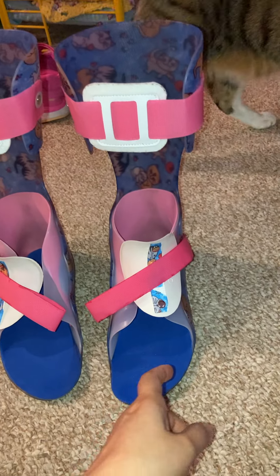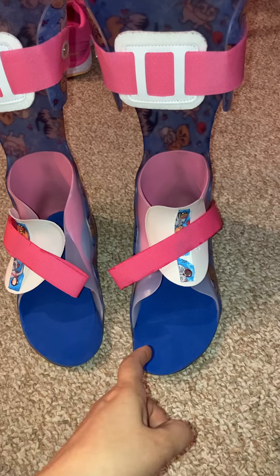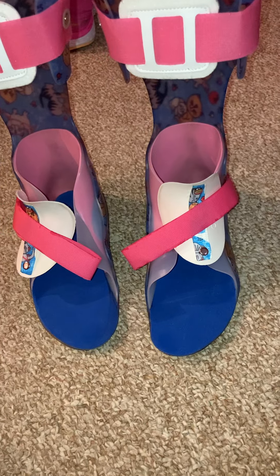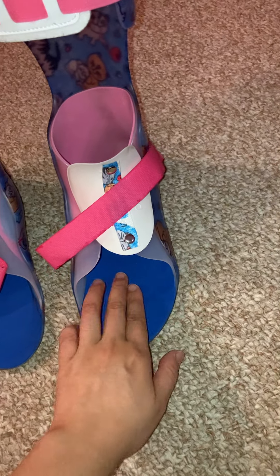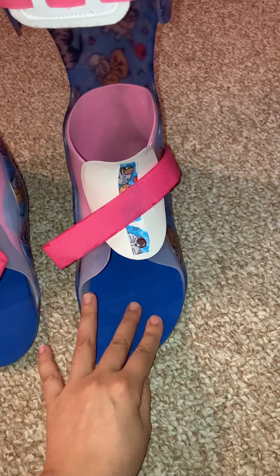So basically they didn't have to trim anything or adjust anything, because the orthotics are fine as long as I stop gripping my feet. They don't rub — they just press a little because I'm doing stupid things with my feet. He did put more padding in here because I need more shock absorption and cushioning, and that was it.